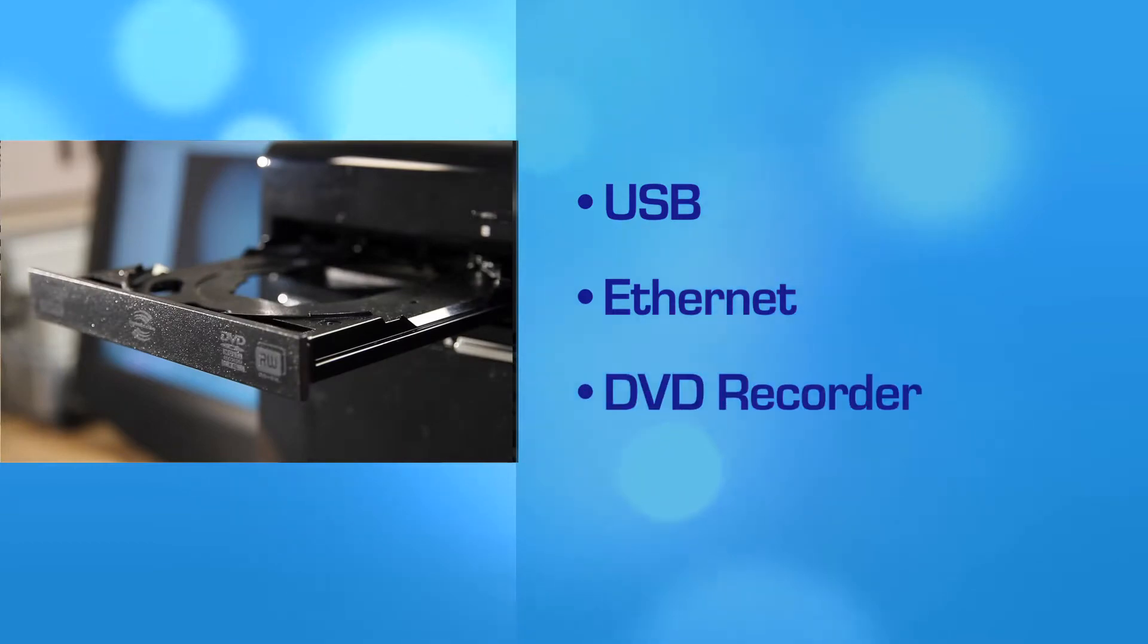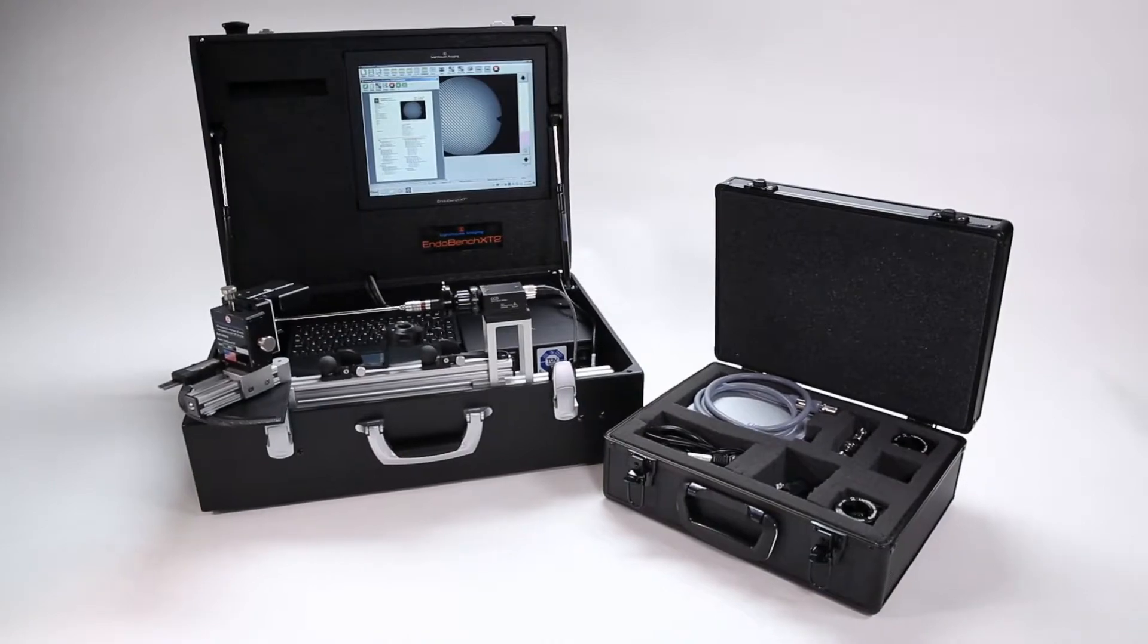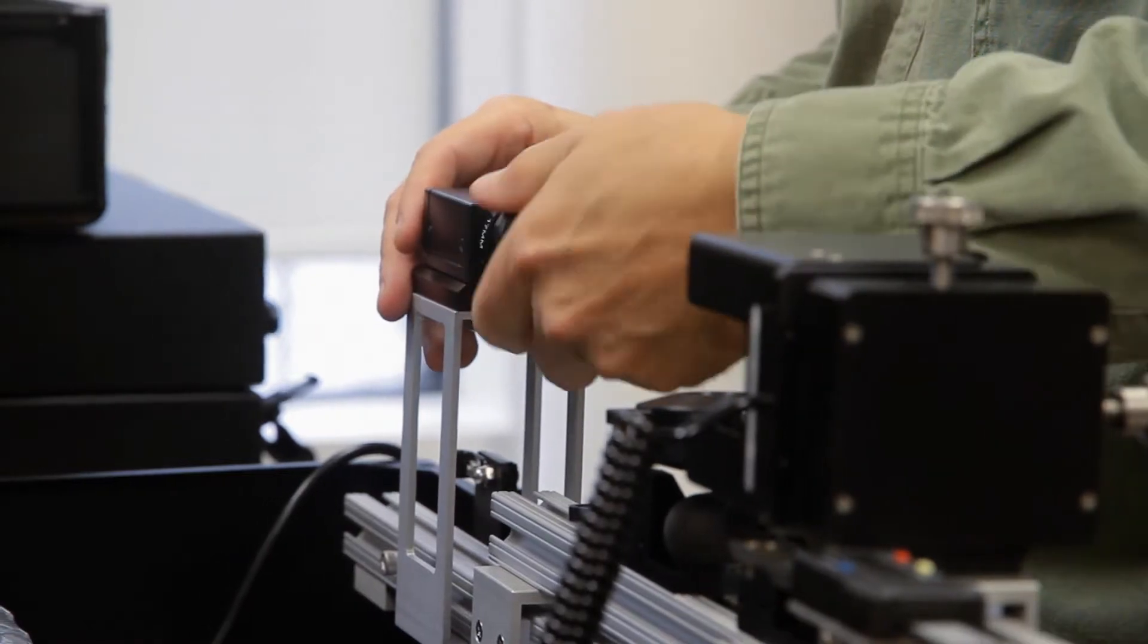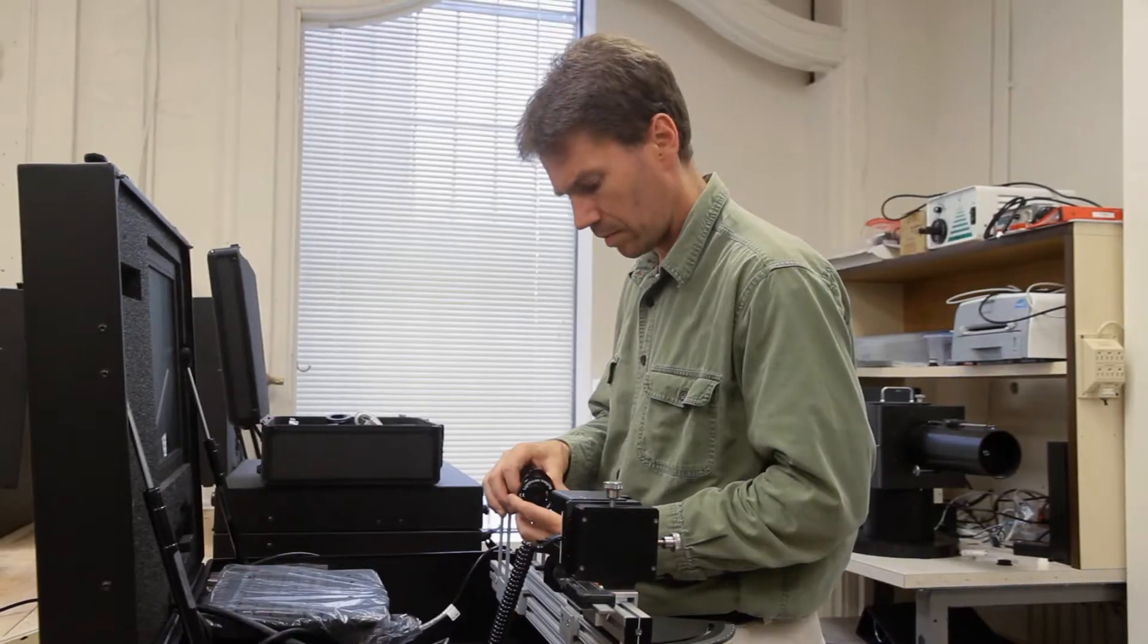All of the EndoBench models are equipped with USB, Ethernet, and a DVD recorder for archiving. We've devoted many years optimizing the EndoBench to allow these complex medical devices to be used in a very straightforward and simple fashion.